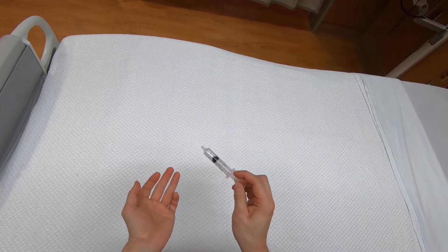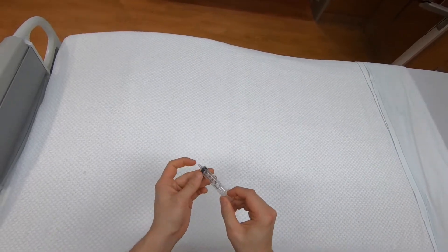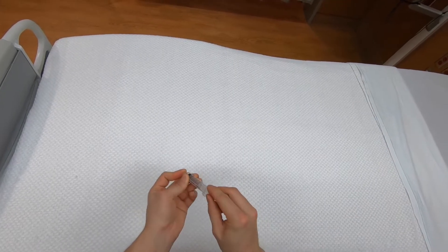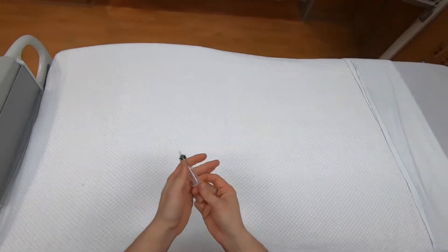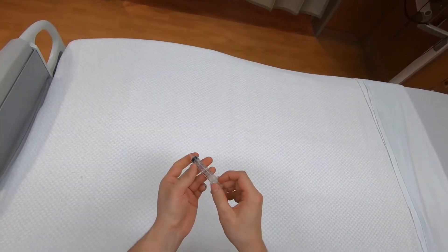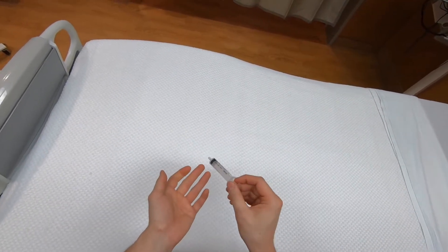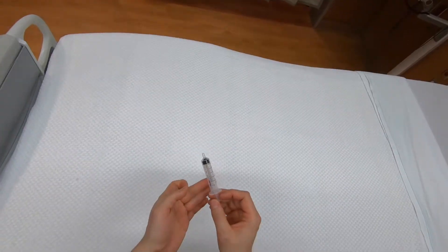Right now as I exert pressure on the syringe it's going to open, but when you're actually in the skin it'll just maintain static pressure because the tip is occluded. So you need a grip that allows you to maintain that continuous pressure while still being maneuverable and ergonomic.